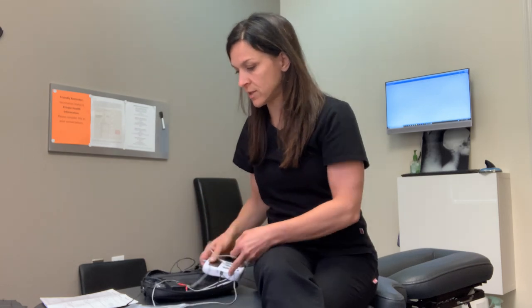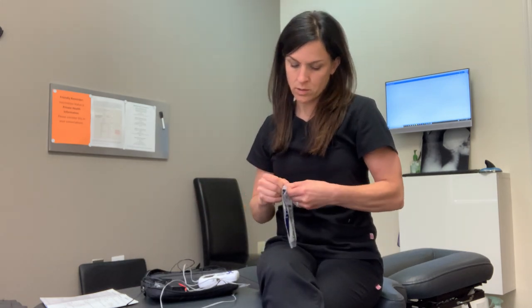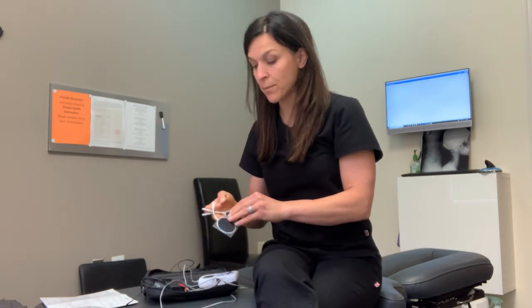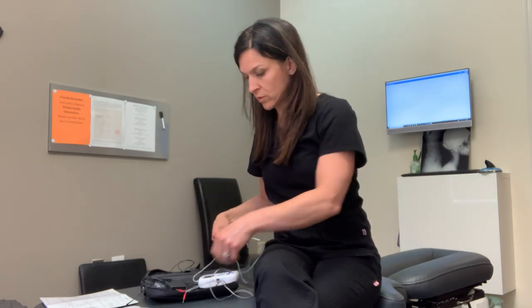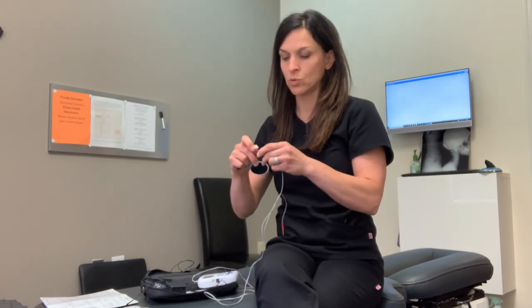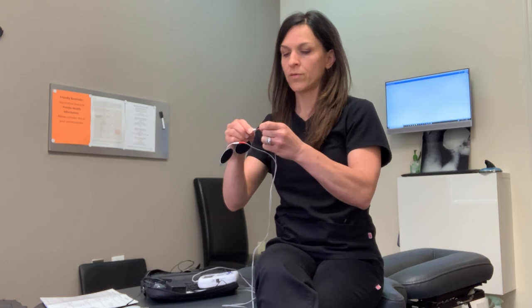You will then need to open your electrode pads that come with it. I recommend you hook the pads up first, then place them on your body, just because if you're doing it by yourself, it's hard to see behind. You're going to take two of the electrodes and put two on the red leads — you simply push the wires in and make sure they are strongly connected. Then you'll do the same thing for the black leads.